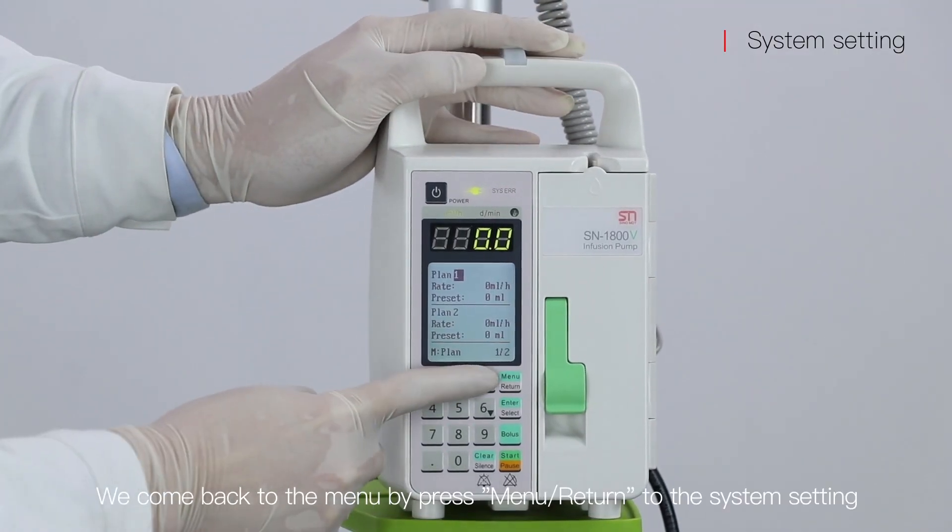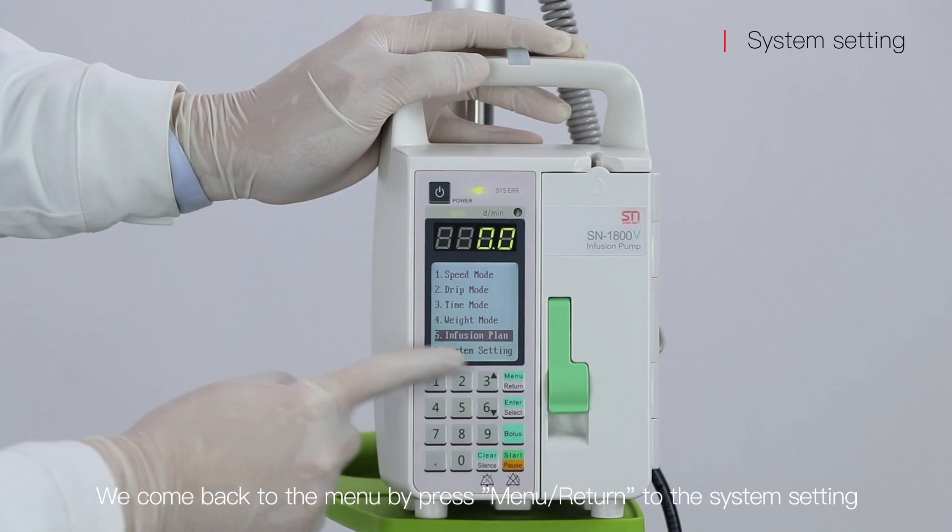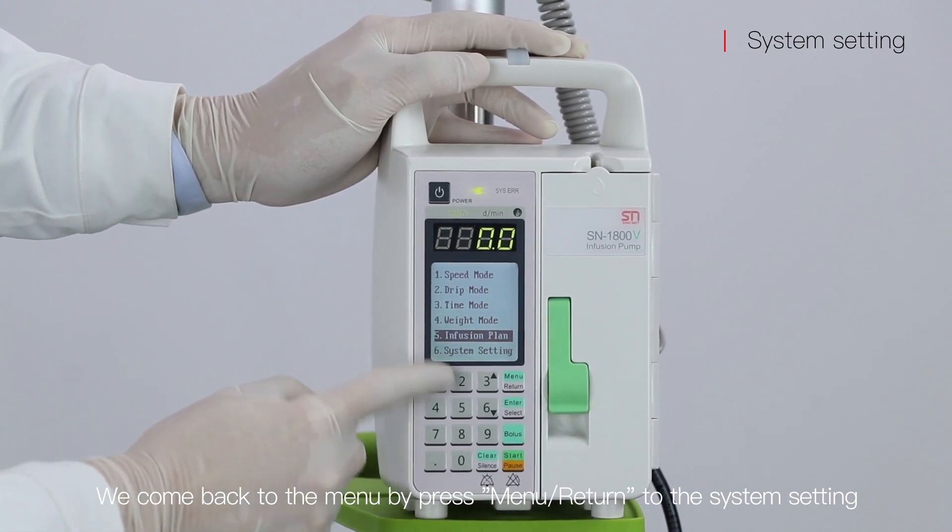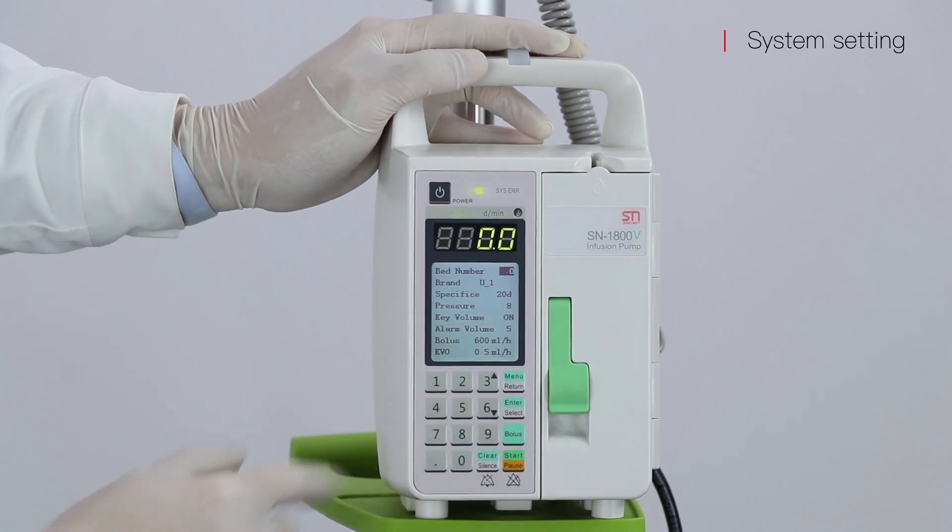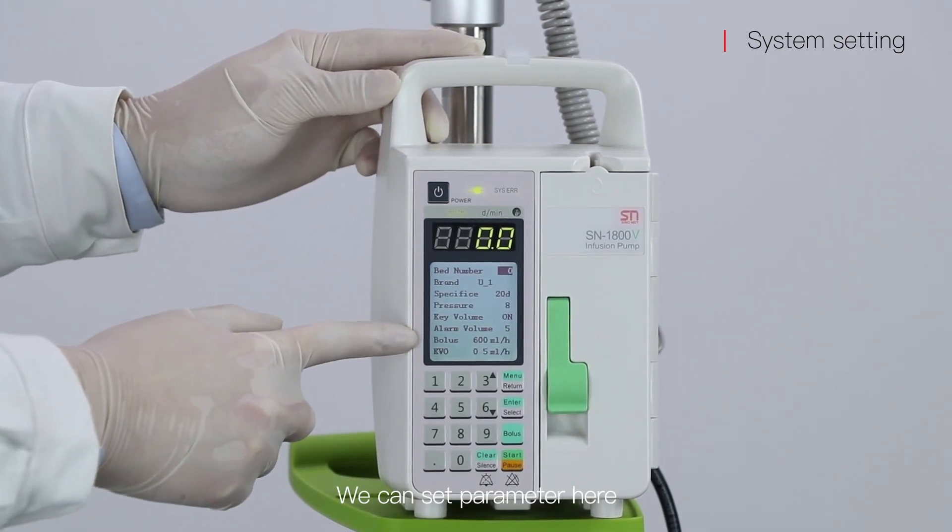We come back to the menu by pressing menu return to the system setting. Press enter. We can set the parameters here.